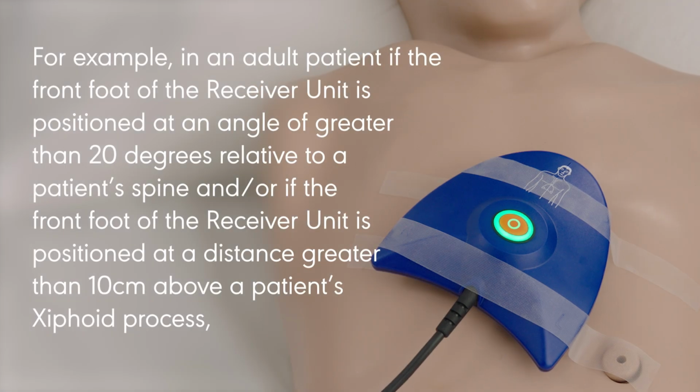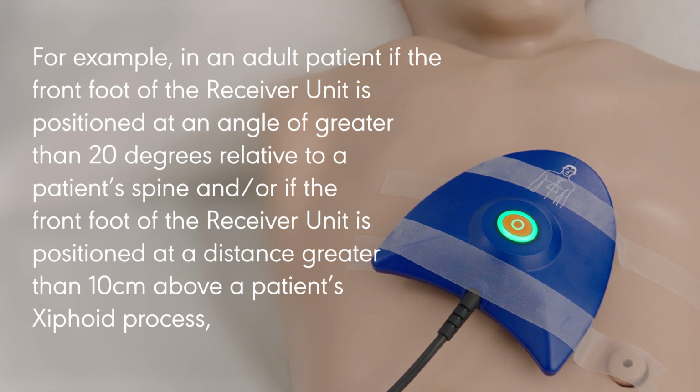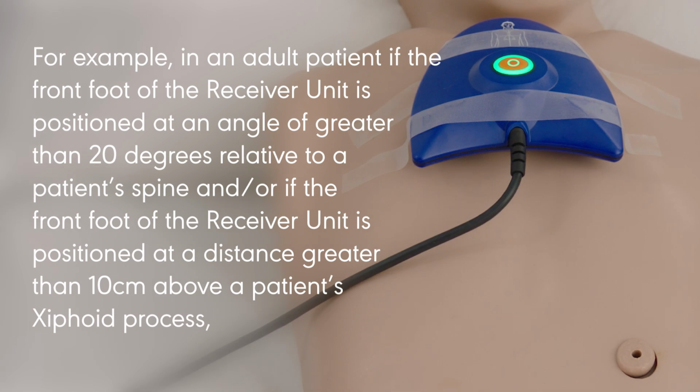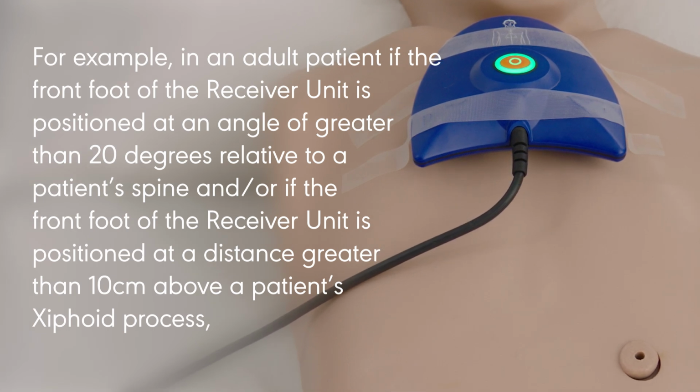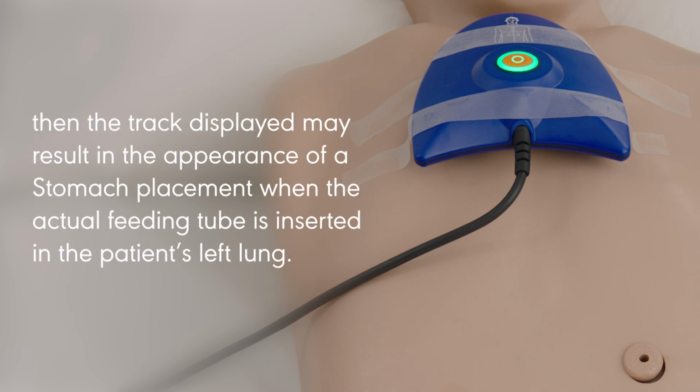For example, in an adult patient, if the front foot of the receiver unit is positioned at an angle of greater than 20 degrees relative to a patient's spine, and/or if the front foot of the receiver unit is positioned at a distance greater than 10 centimeters above a patient's xiphoid process, then the track displayed may result in the appearance of a stomach placement when the actual feeding tube is inserted in the patient's left lung.